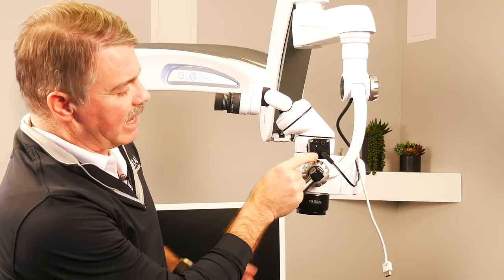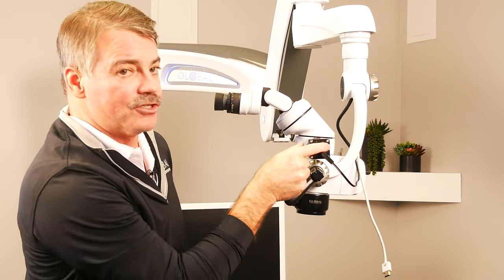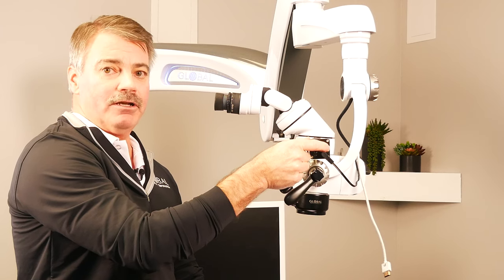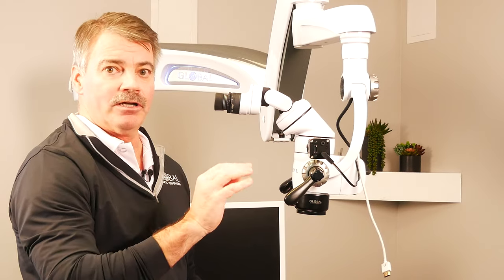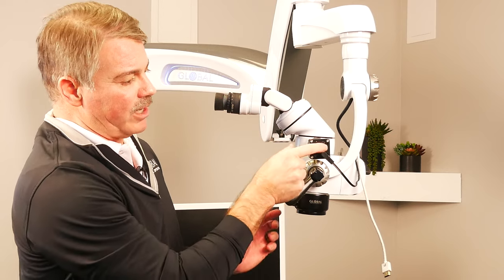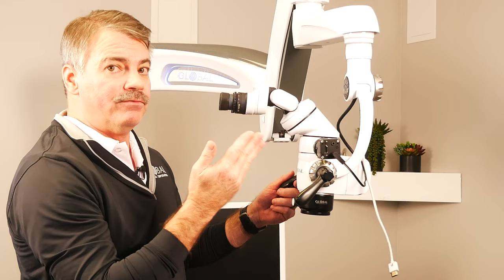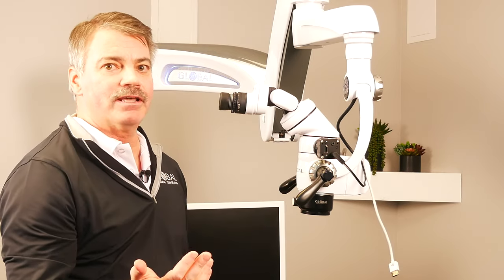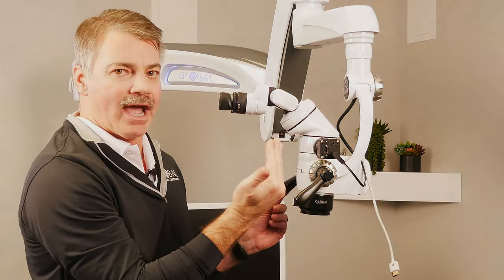One thing that can accidentally happen in the office: there's a button on here used for white balance. You would want to have this in focus on a blank white sheet of paper, then tap the button once — it'll automatically white balance the camera to that particular lighting. Some offices will sometimes press and hold this button for three seconds, which will actually flip your image 180 degrees. If you ever have a customer that runs into that issue, just have them hold that button again for three seconds and it'll invert the image back to normal.